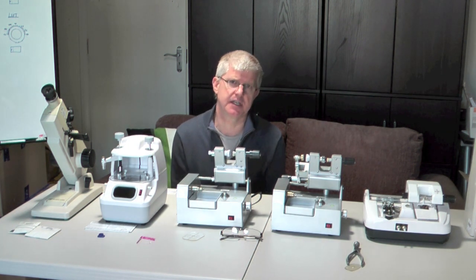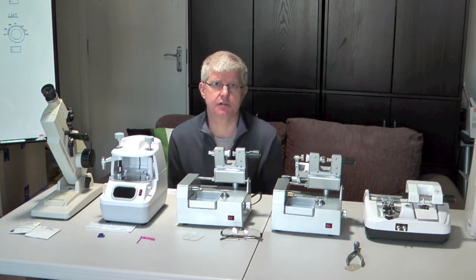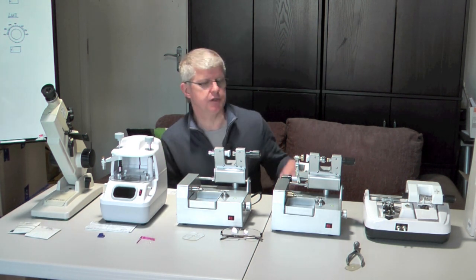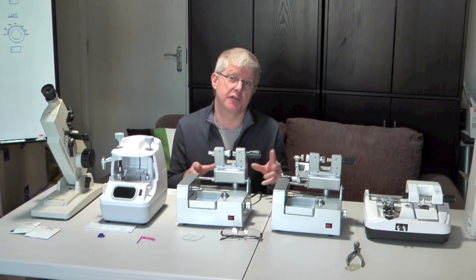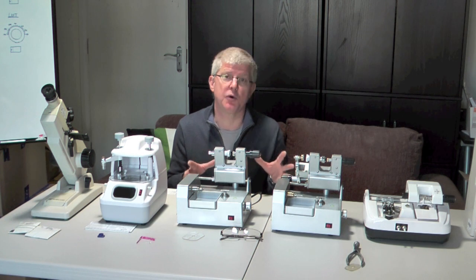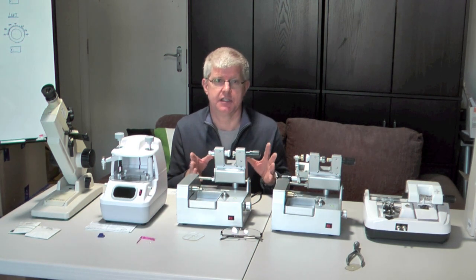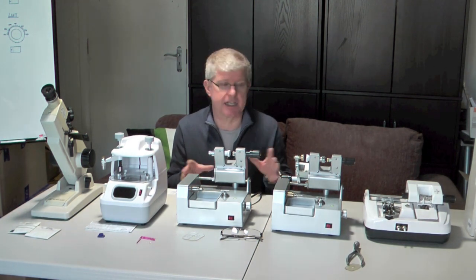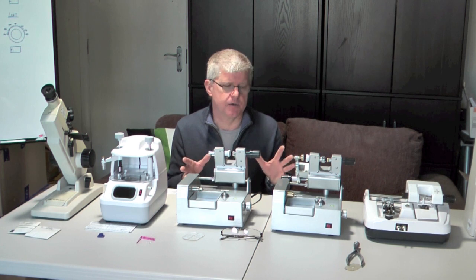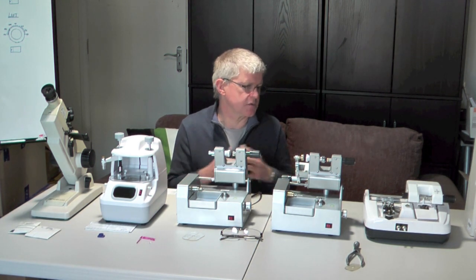Because we're working in very remote areas, we tend to use equipment that is very simple, very basic, very affordable, and very portable. There's no point taking sophisticated, expensive equipment to some of these very remote areas because they just will not survive in that environment. So we want to keep it all as simple as possible.